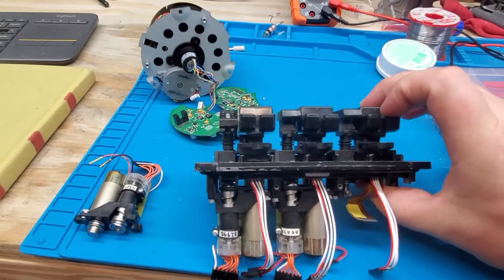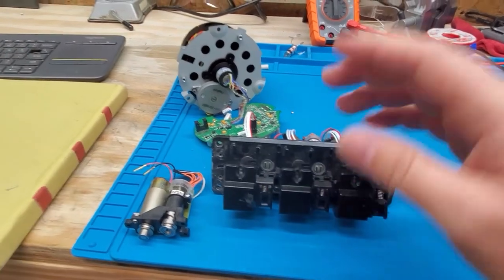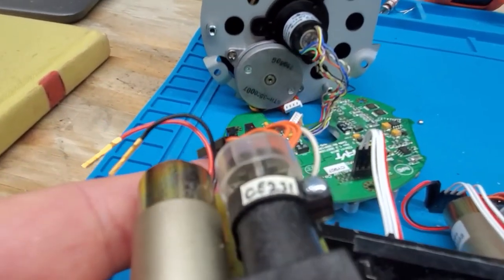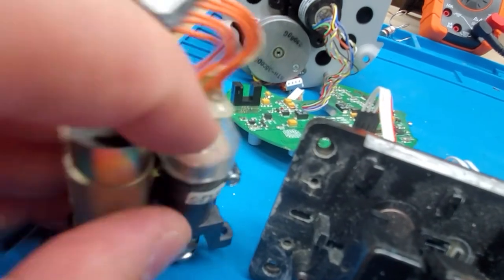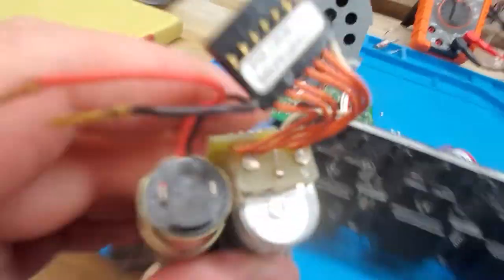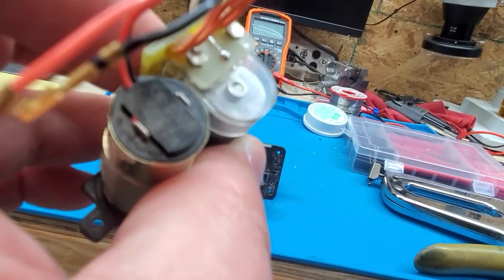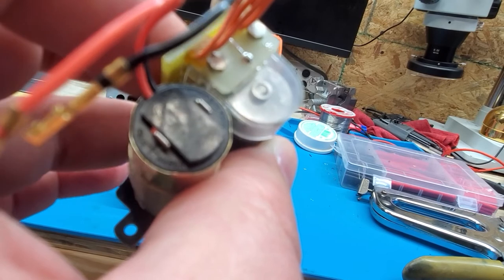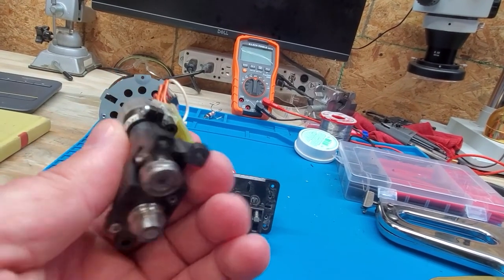If you don't recognize this, maybe it's because I have it upside down — these are the motor assembly to the three channel pump. Take a look up in here under the plastic. See that metal disc right here? As I rotate this, there are some tiny little spaces in there. See those little tiny spaces? Those tell the pump how fast and how many times it has gone around.